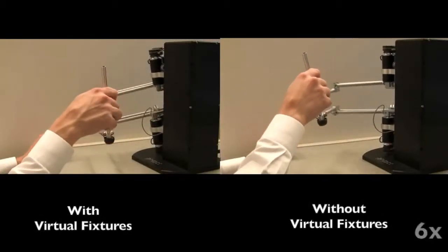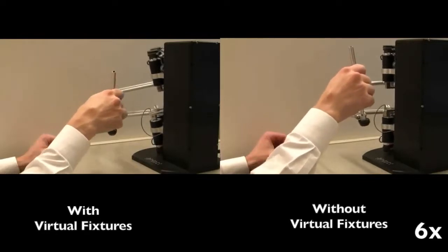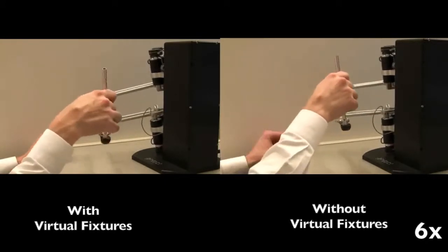I was able to move around in multiple circles with less fatigue when I was using the virtual fixtures. I was having to spend a lot of time controlling my large muscle groups in my shoulders and arms when I was trying to stay within my free hand circles when I did not have the fixtures on. But when the fixtures were engaged, I basically didn't have to worry about two different dimensions — one getting too close to the tumor and the other getting too deep into the tissues — and I could just focus on making the circle movements.